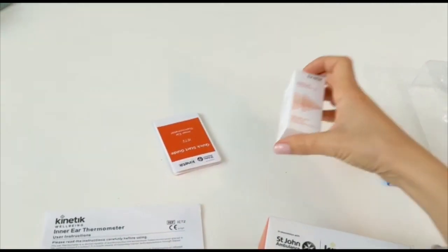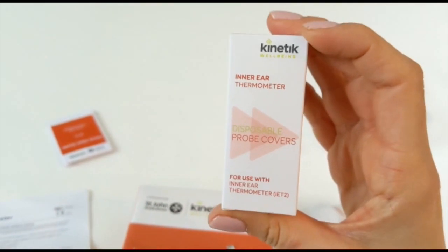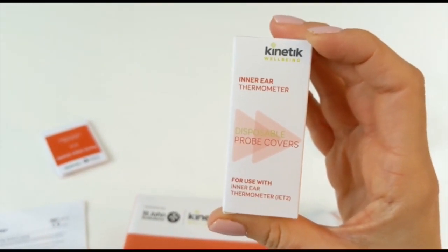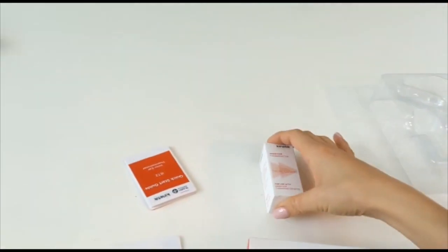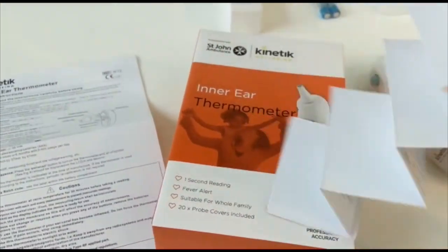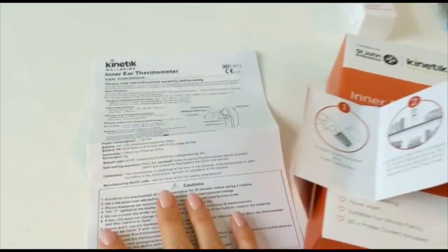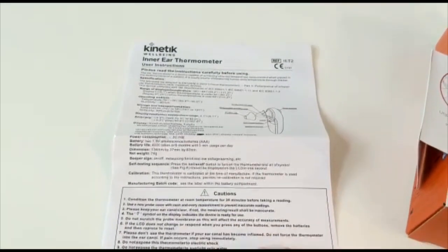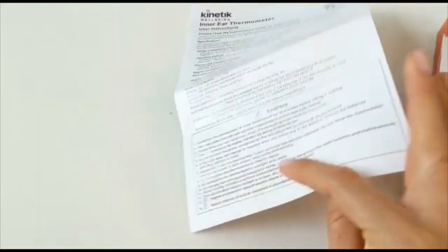And disposable probe covers, which at the moment is particularly important to stay hygienic. We have an option here, so you can use the quick start guide here or we've got the more extensive instructions here.